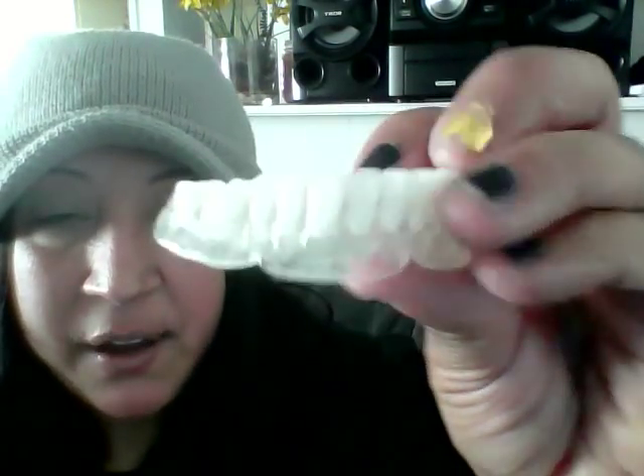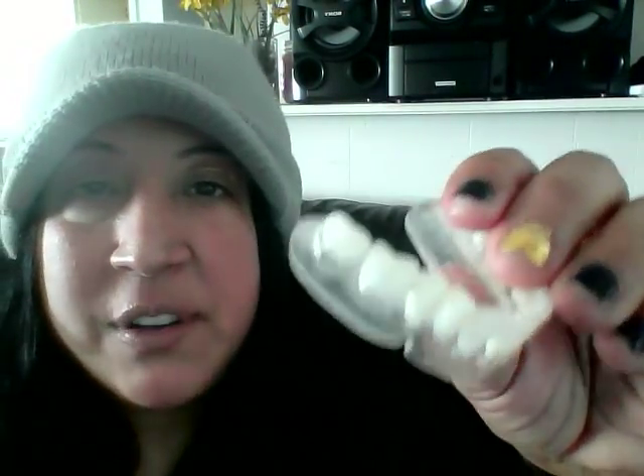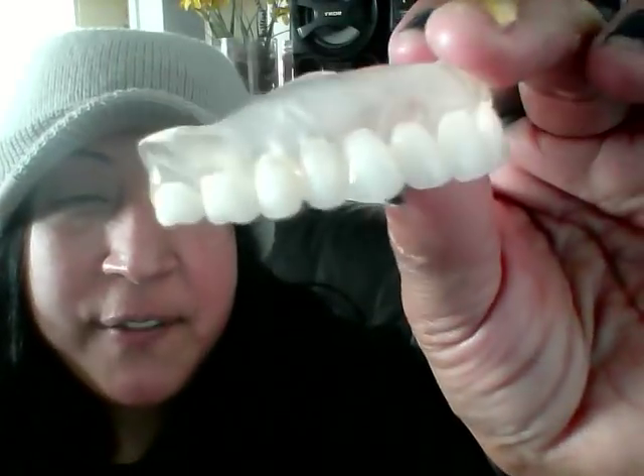As you've been following me, I've been showing and sharing the ultra thin clear custom denture from Russell Klein, and I'm going to show you the lower display denture from Russell Klein. For those who don't know the difference between the custom and a display: the display is an as-is purchase where you go only by measurements of the mouth — you have no say in shade, shape, or size of the teeth, and there is no guarantee on bite or fit, as stated in the item description. With the custom, you get an impression kit, take your impressions at home making a mouth mold, and you do have a say in teeth shade, shape, and size.